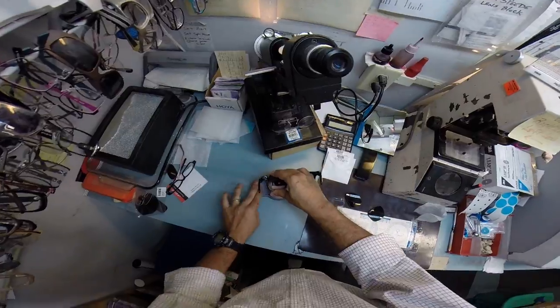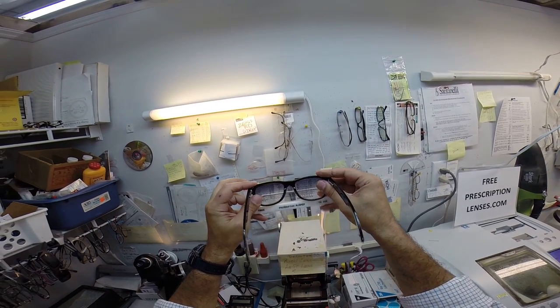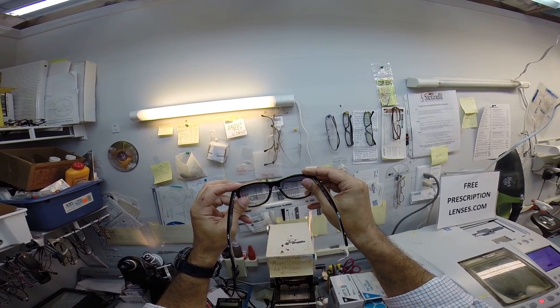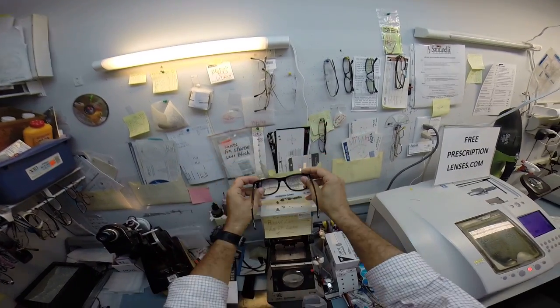Let me take this block off. Dry your lens off. I do want to make sure the left lens is mounted perfectly in the same height as the right. And it's so well on that line. I have to move it just to see. Yes. Yes, it is.